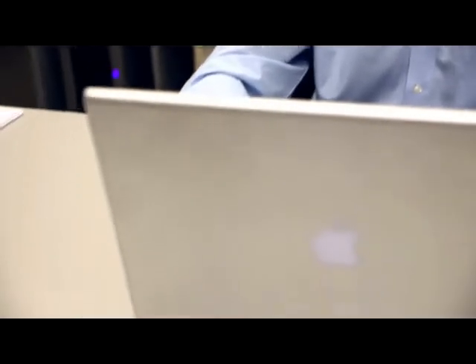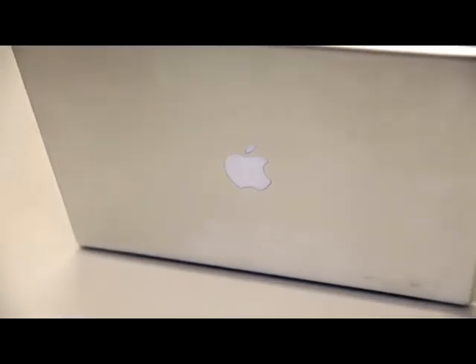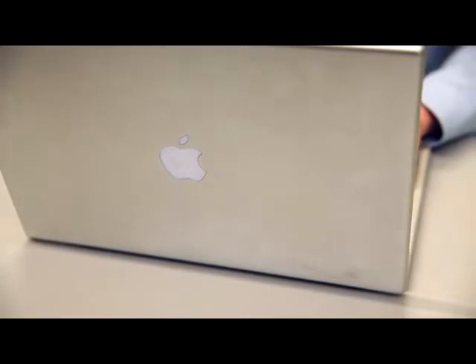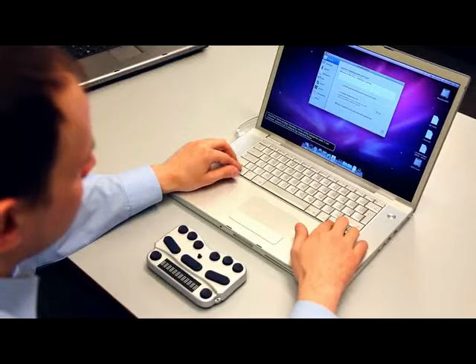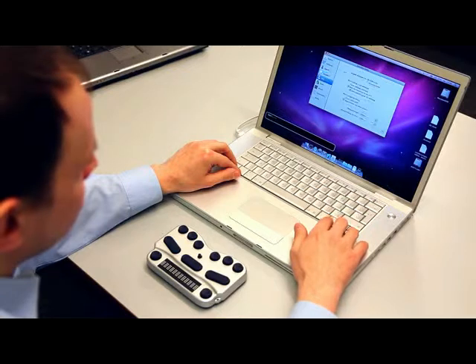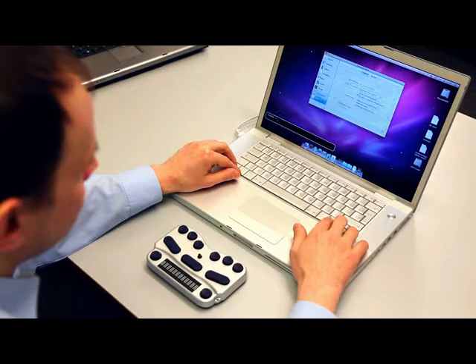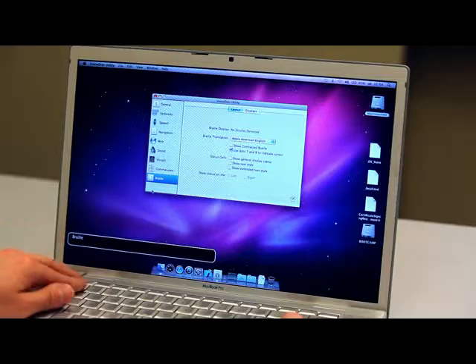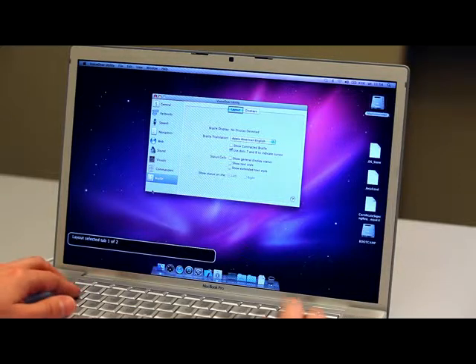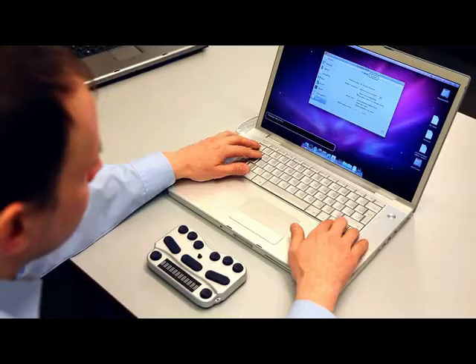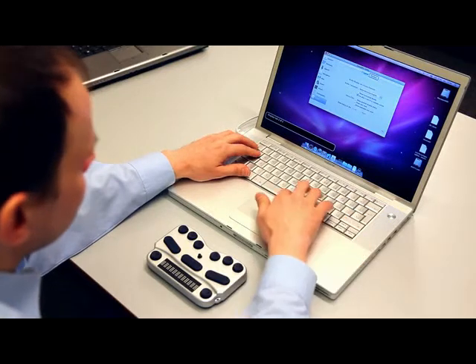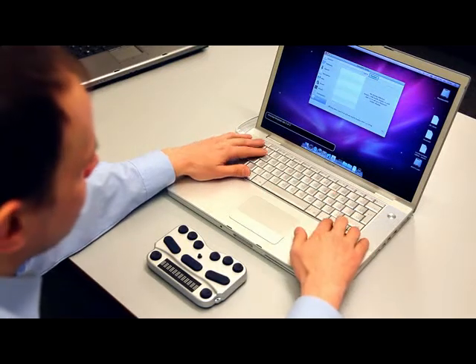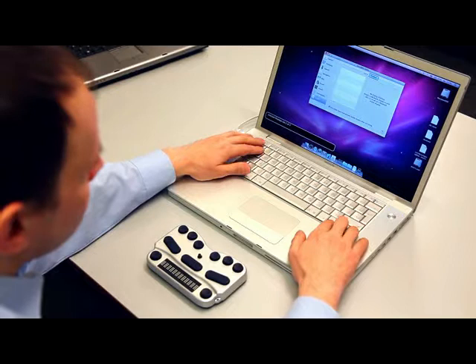When VoiceOver is on, open VoiceOver Utility by pressing VO F8 (Control Option F8). Press Tab or Shift Tab to go to the Utility category, then arrow down to the Braille category. Press Tab to Layout, right arrow to the Displays tab and press the Spacebar to select it. Then press Tab to the Add button.